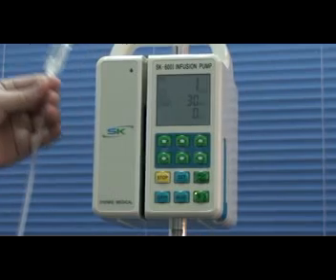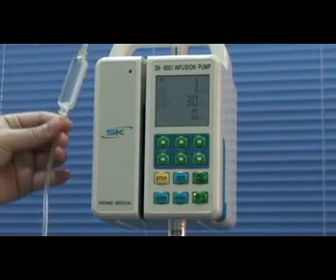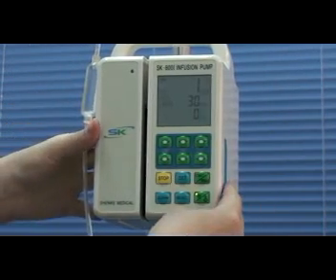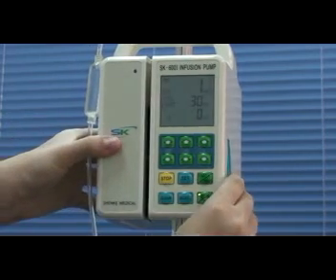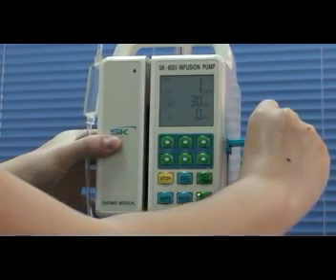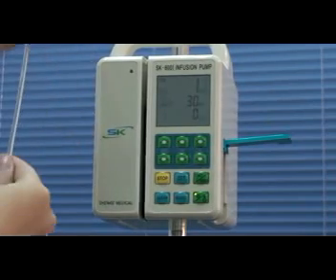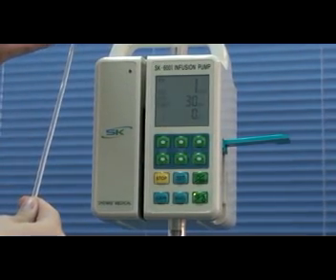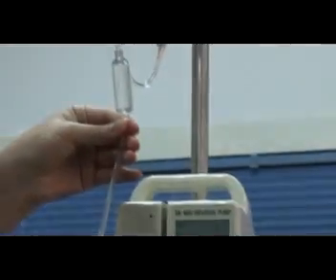Then fix the IV set inside the pump. Firstly, you need to open the door lock. Then straight the IV set, making sure no air bubble is leaving inside.